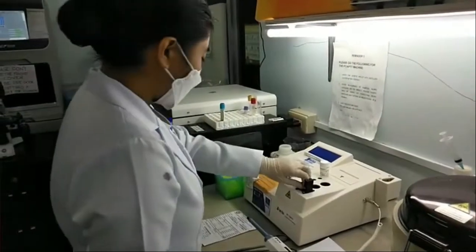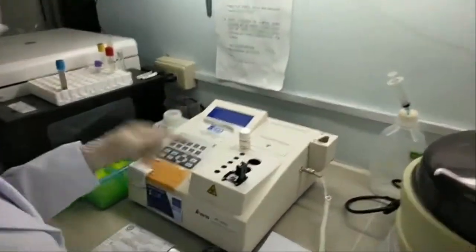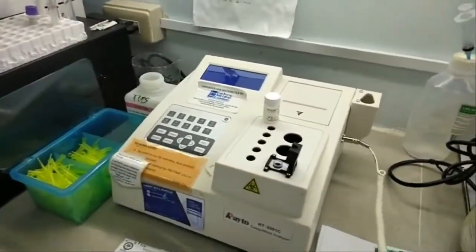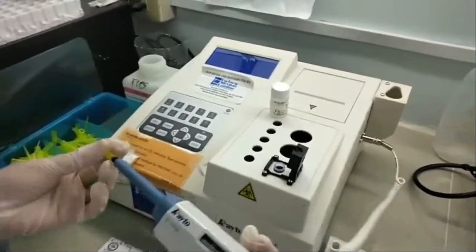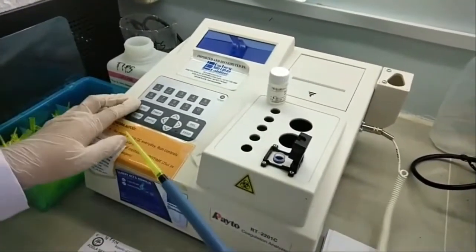To manipulate the analyzer, place a cuvette on the test channel. Prepare the electronically linked pipette.